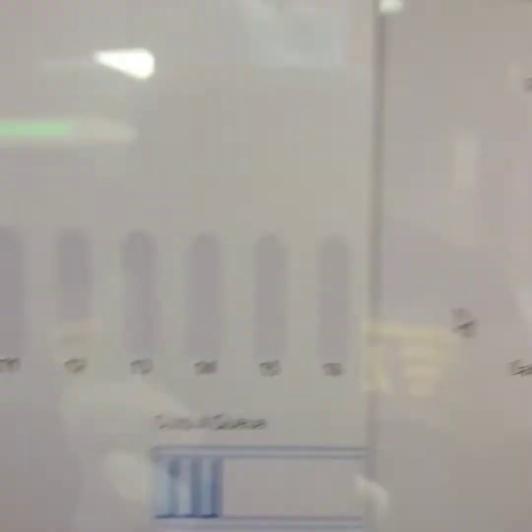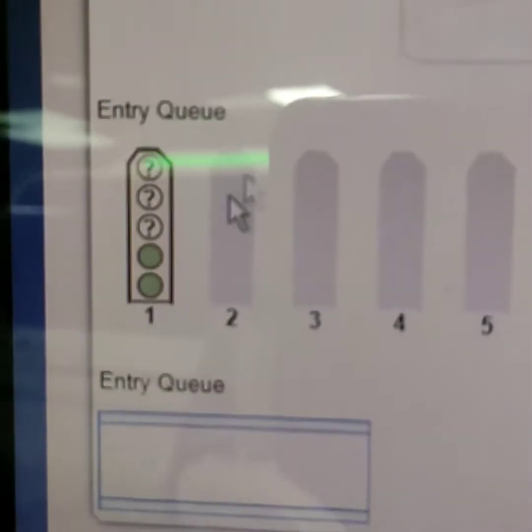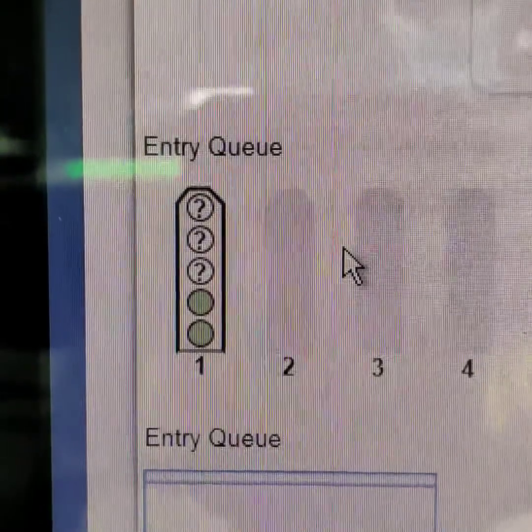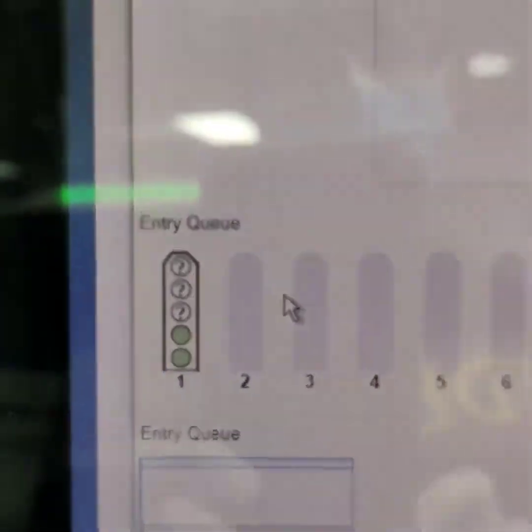Now both red signals turn into green, which confirms that our calibration definition is complete with lots C6251L and C6251H successfully defined.